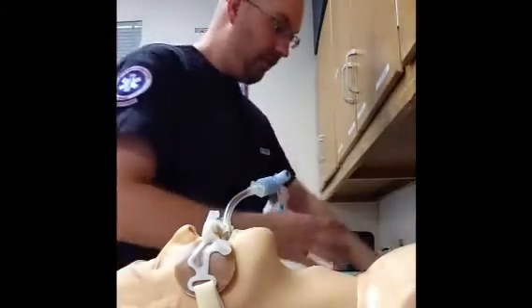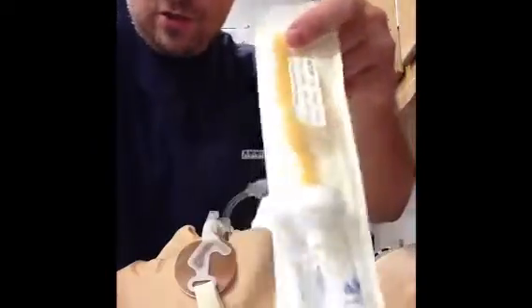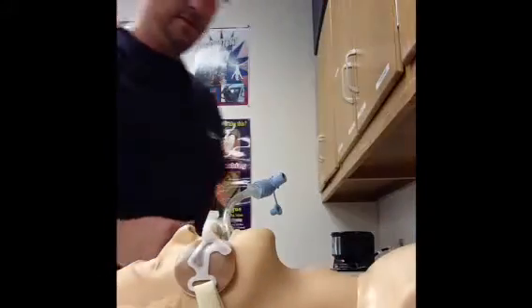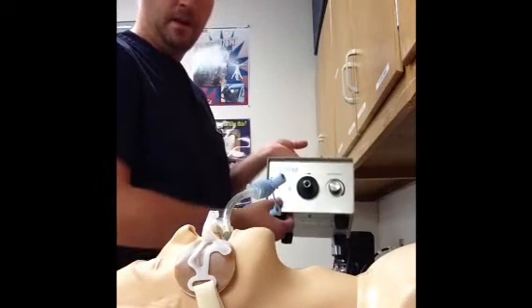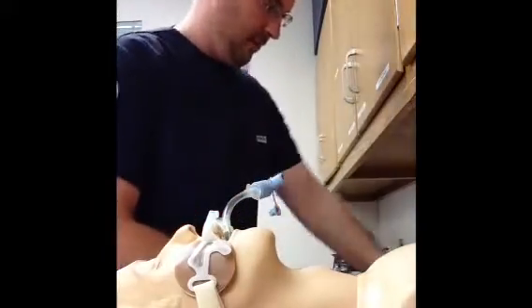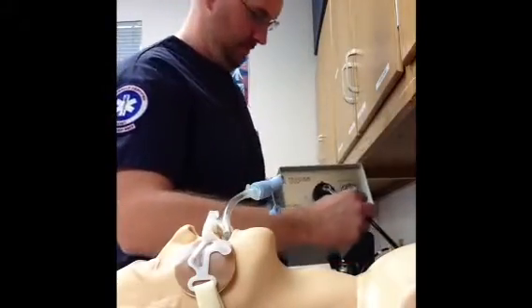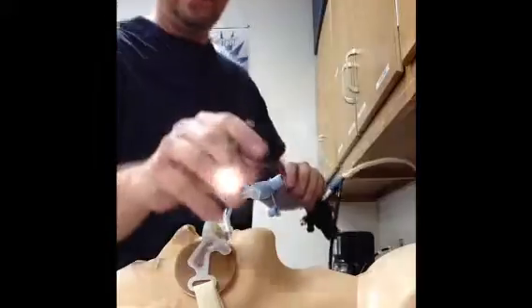Those are the basic components of a bronchoscopy setup. Some other things: you may add something called a Lukens trap that's connected into your suction tubing, and it allows you to obtain samples of the material that you suction out of the patient's lungs. A bronchoscope also requires a light source element — the fiber optic element of the bronchoscope actually plugs in to the light source, it snaps in, I turn it on, and now I have light coming out of the end of the bronchoscope, and I can actually increase or decrease the brightness of that light as needed.